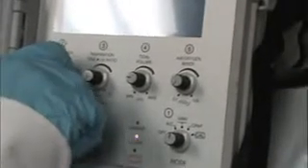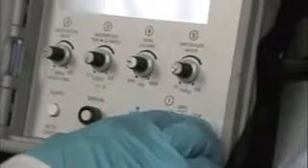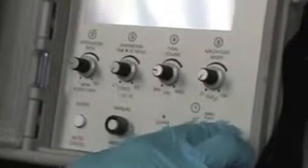In order to use this mode of CPAP, the patient has to be intubated. They can't have a BiPAP mask on or something like that. They have to be intubated, and this allows the patient to breathe with some support from the ventilator. We can even set a rate if we so desire, but this is not a substitute for non-invasive positive pressure ventilation. For the most part, in the transport setting, we're not going to have patients sitting in CPAP. We're usually going to have them in SIMV at a minimum, and we'll have them on a rate so that we can make sure they're ventilating adequately.